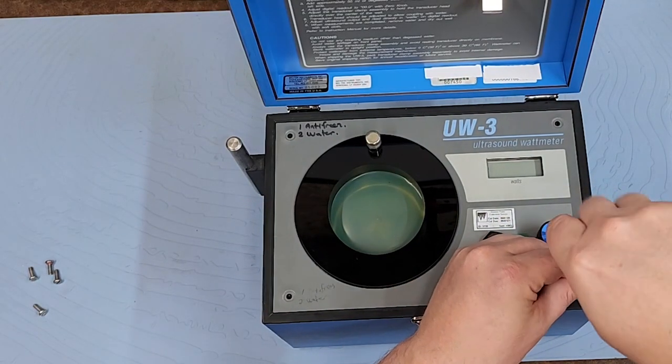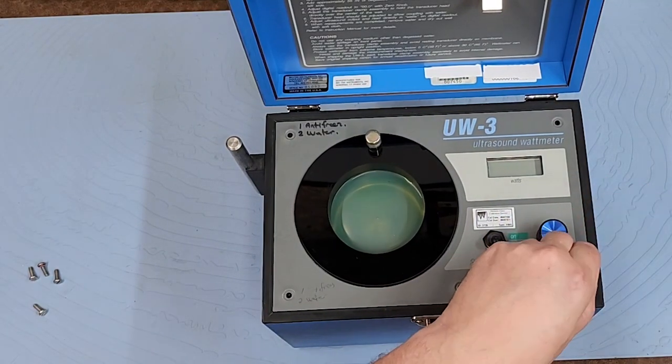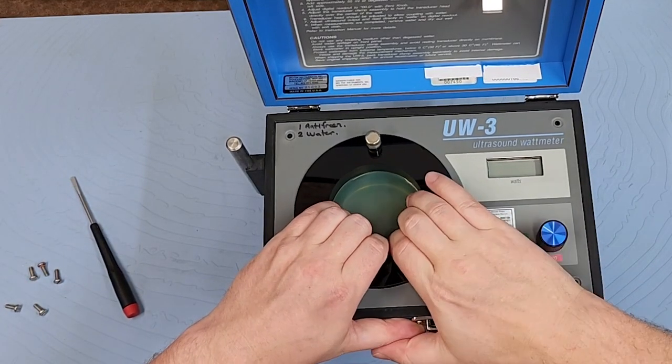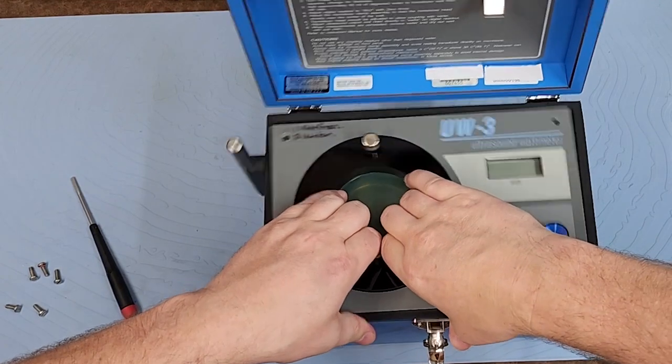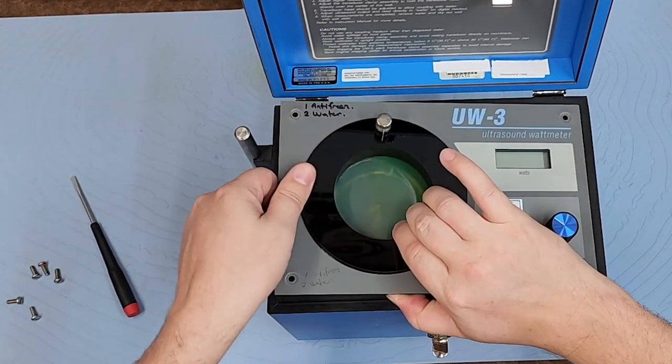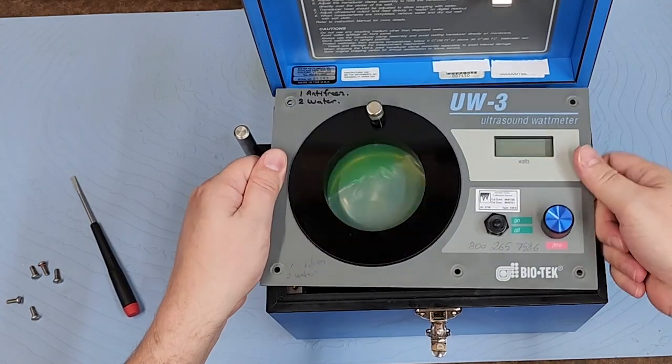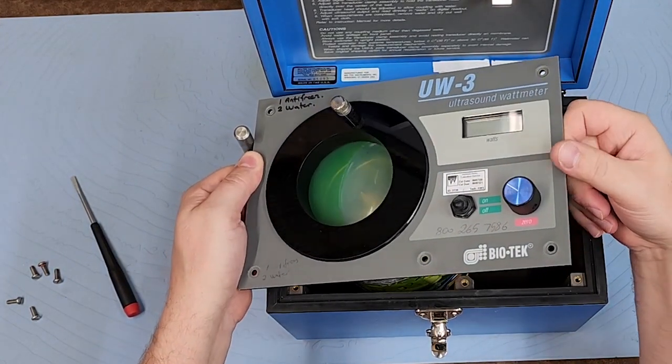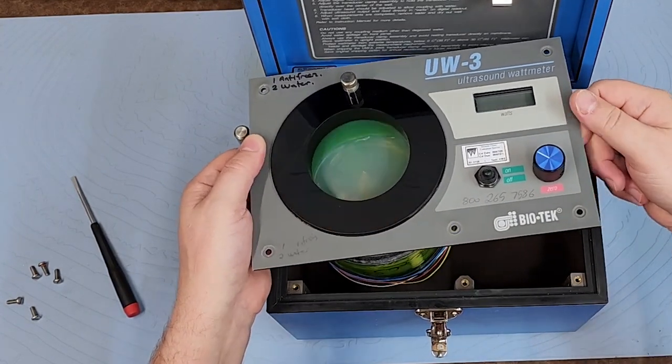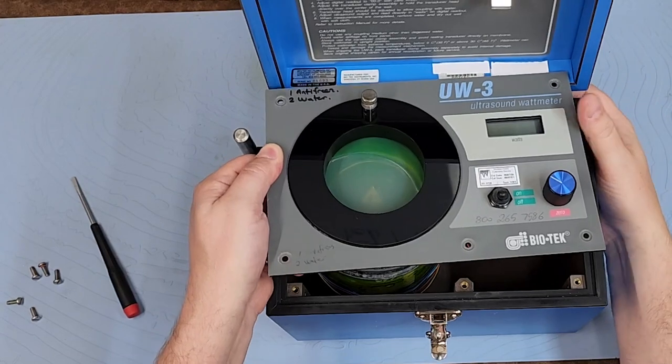I have a couple videos on it, but this is the watt meter that you would use to measure the output from those devices, because the last thing that you want to do is overexpose your patients. So in physical therapy, the ultrasound therapy system is probably the most potentially harmful.